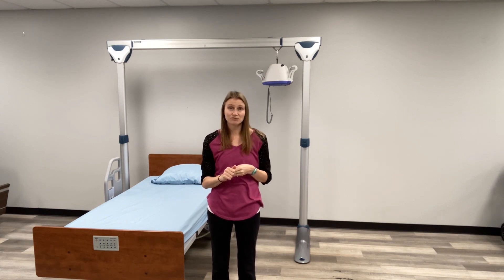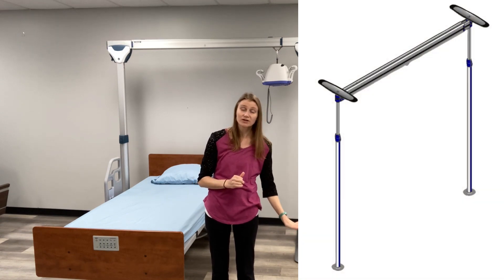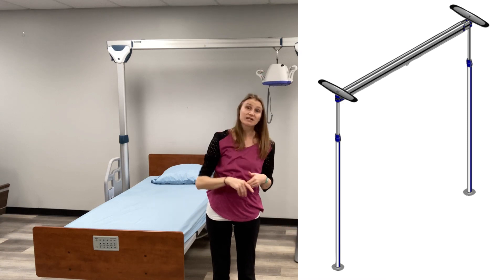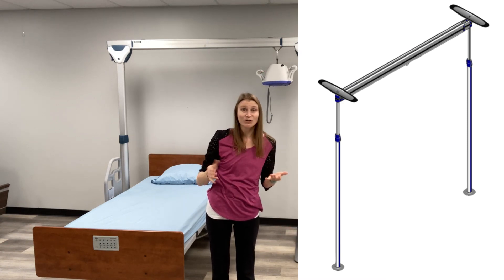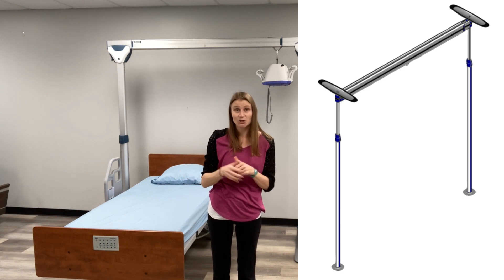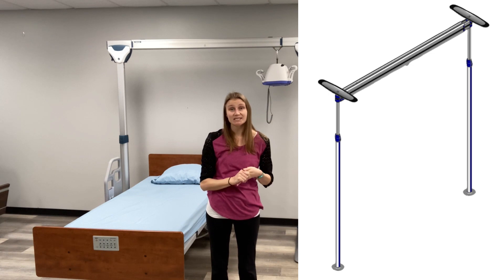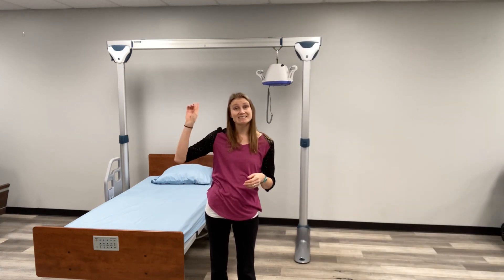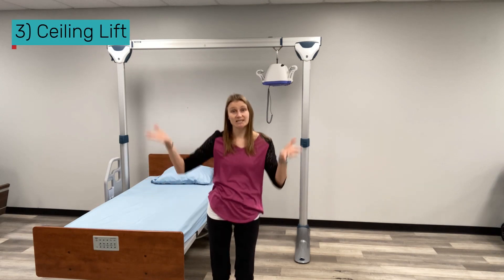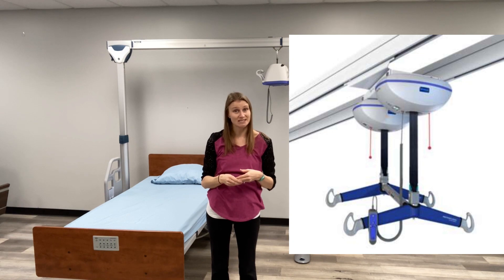The second type of lift is a suspension lift. Suspension lifts have a point of contact with a plate on the floor, a second point of contact with a plate on the ceiling, and those are mounted with tension — imagine a curtain rod that you twist to make the tension go tighter or looser, adjusted floor to ceiling to support the lift. The third type is a ceiling-mounted unit that gets installed into the beams on the ceiling and is stationary there for the same function.